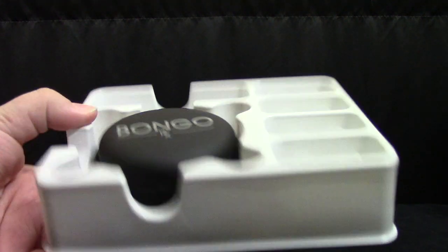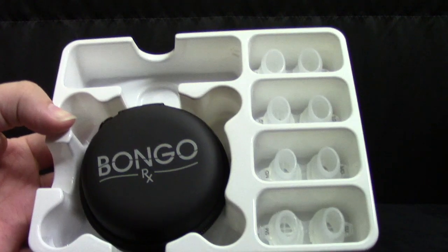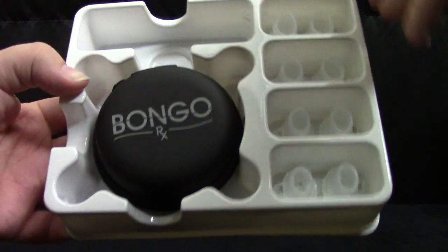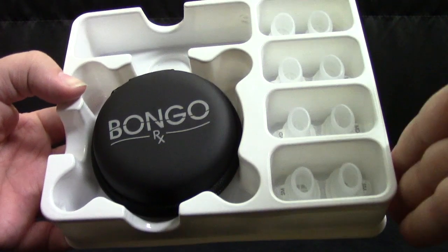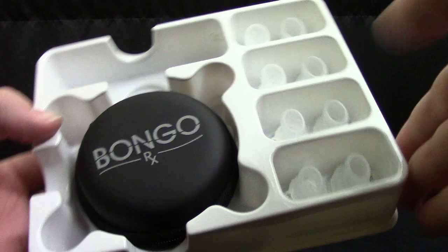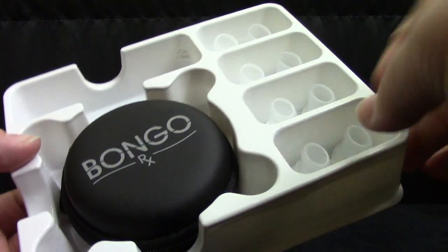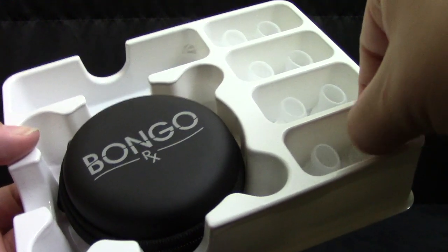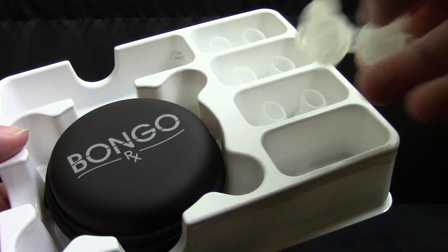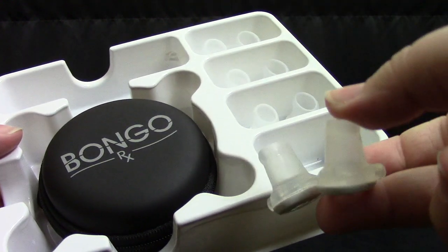If you choose a starter kit, it will be comprised of all four size cushions. If you choose an annual pack, four cushions of the same size will be included with your purchase.